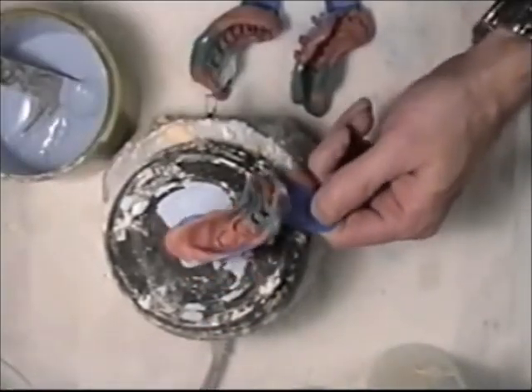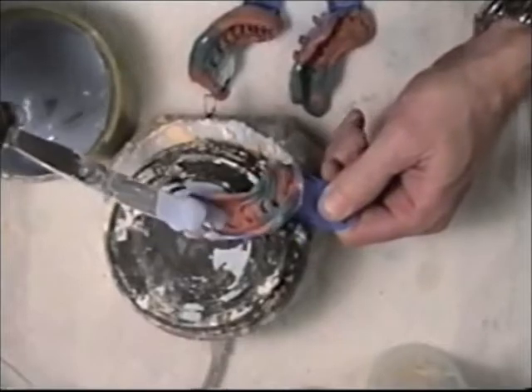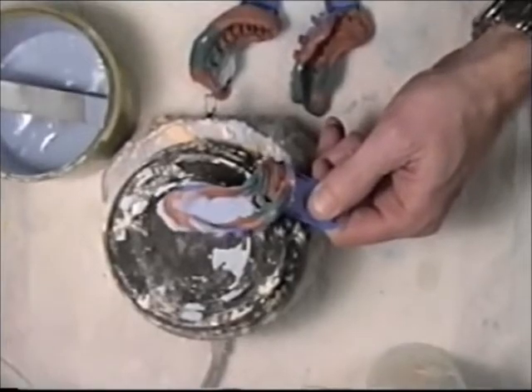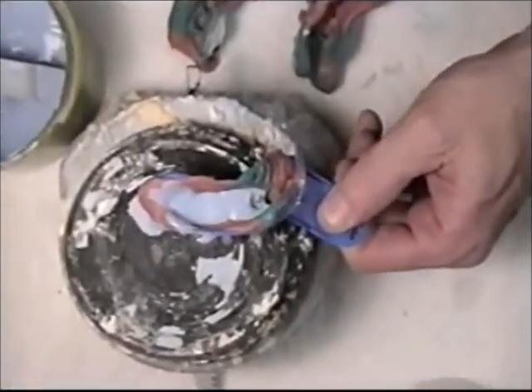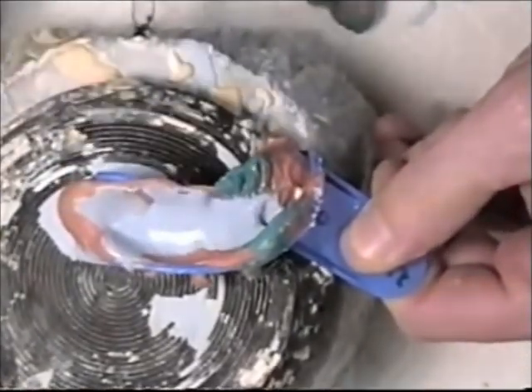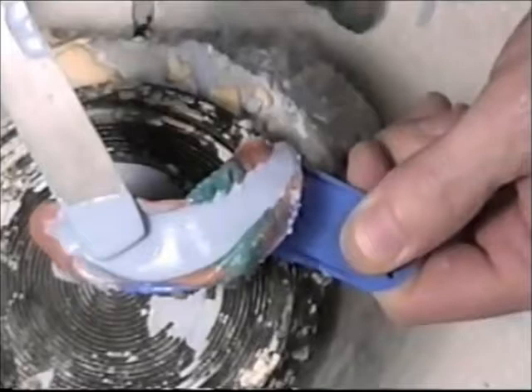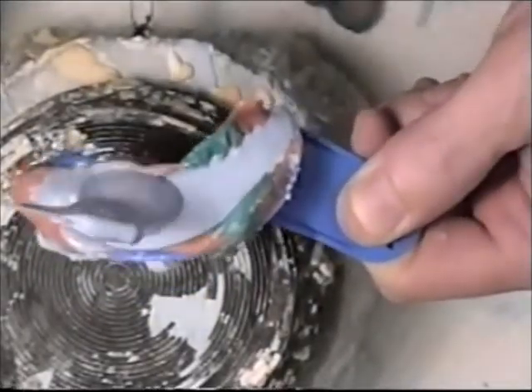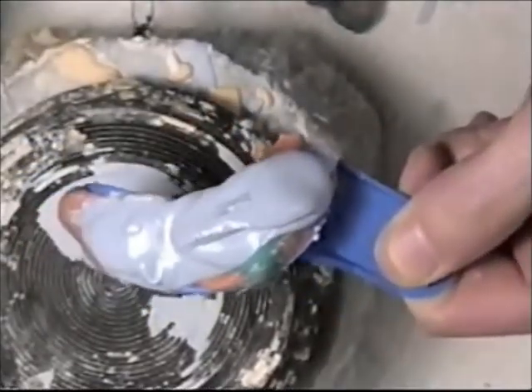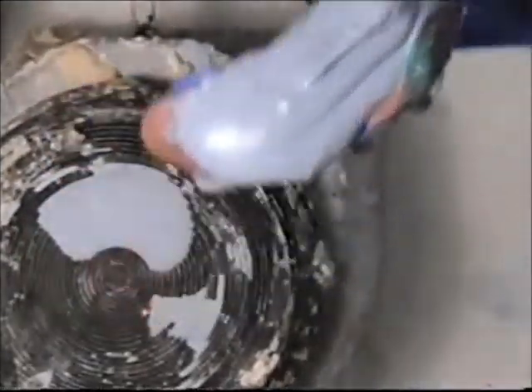Turn on my vibrator here and just scoop up a little bit of wet stone. Start back here on the posterior region. Just let it flow by itself — you can kind of work it with your spatula. Then I take it off the vibrator and just build it up, and that's all we need to do. I'll just place this aside somewhere where it will not be disturbed.